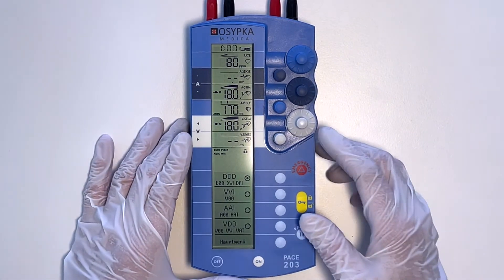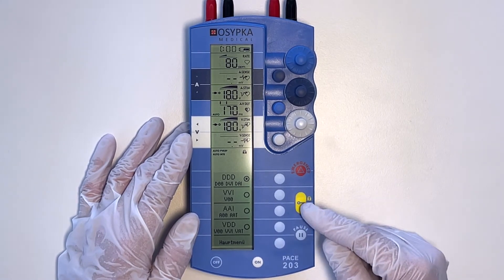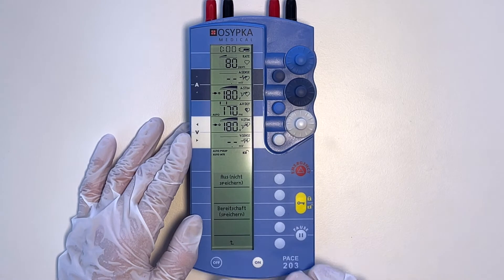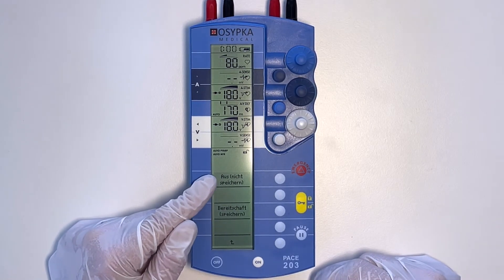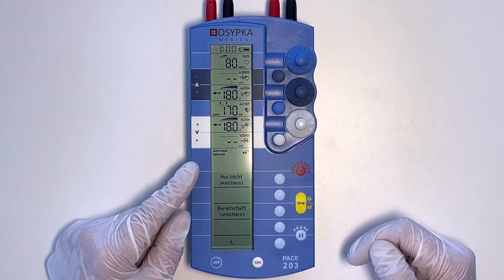The fourth thing is how do you turn the device off? To do this, press the yellow button to unlock and then press the OFF button. You'll have a choice of two. Either you completely turn off the device by choosing OFF — then all recently changed parameters are deleted and a standard set of parameters will appear as soon as the device is turned on again.